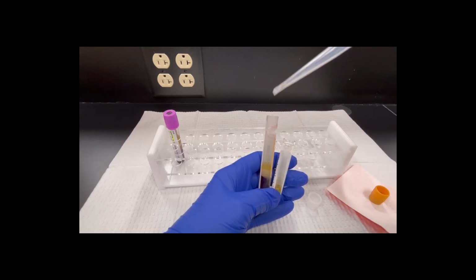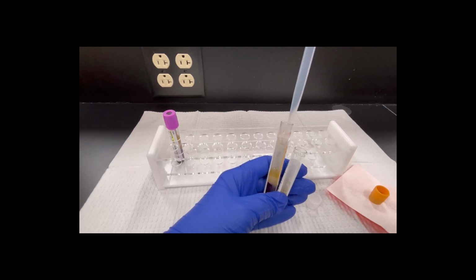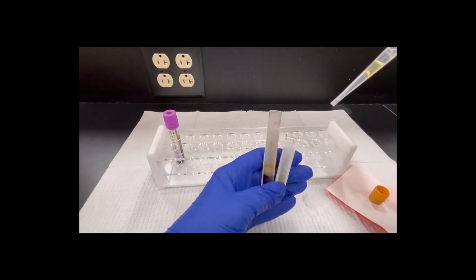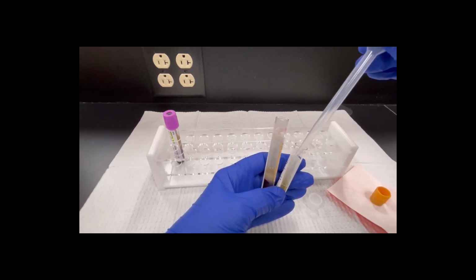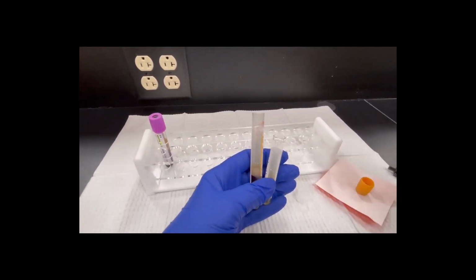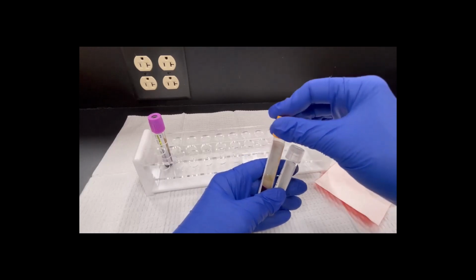But without the gel, if we get cells, we have to be done. So we go halfway. Now this last time, I'm going to go the rest of the way and suck it up, but I don't want to touch that gel layer. I don't want that in my sample. I'm going to put it the rest of the way in this tube. The pipette can go in my waste bucket over there on my side. I can put my lids both back on.